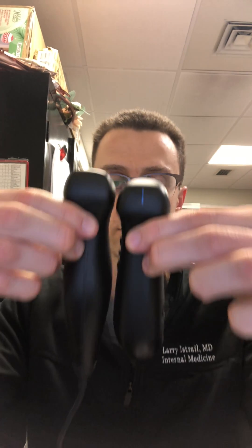It's smaller, fits in your hand a little better. Here's the old probe — you can see it's a little smaller. It has a more ergonomic design, a lot easier to hold, it's more like a pencil. It has an all-black sleek look, which is pretty cool. Still has the probe marker of course, and now it has these new programmable buttons on the front to control image capture, video, zooming in or out, increasing the depth, things like that.